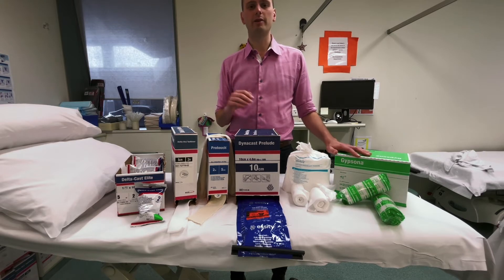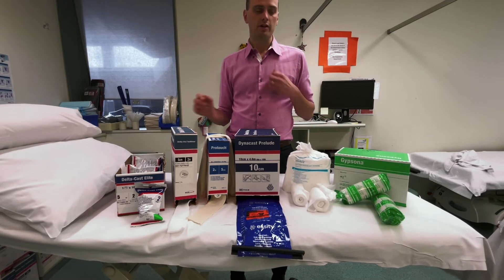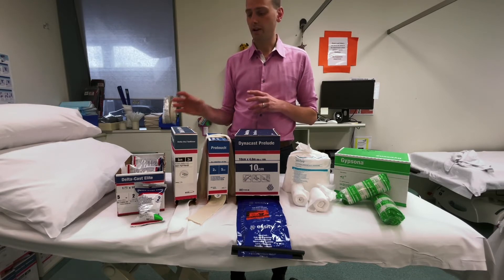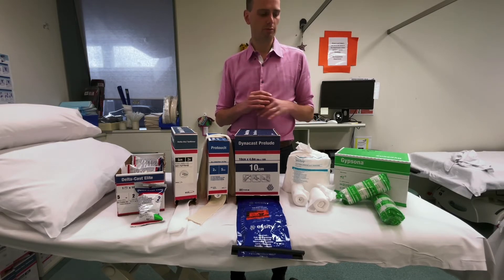Contrasting the two: plaster of Paris is better for reductions, but it's heavier, takes longer to dry, and is more prone to cracking — although both can break if abused. Synthetic is lightweight and waterproof, so combined with a waterproof under-padding it can get wet and dry out. The downside of synthetic is that it's harder to work with — especially around the thumb for a wrist splint — and cut ends can have sharp parts needing a file to smooth off, which is less commonly encountered with plaster.